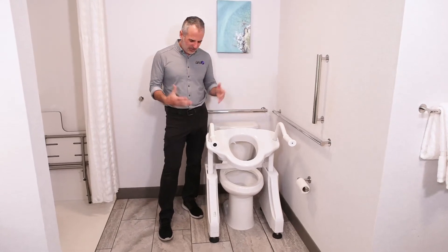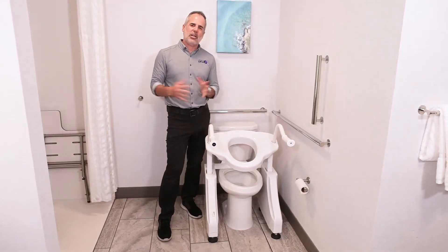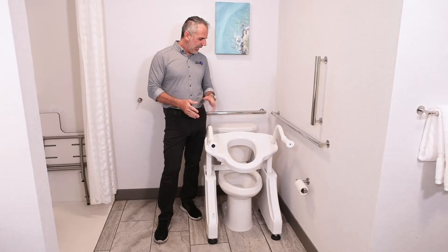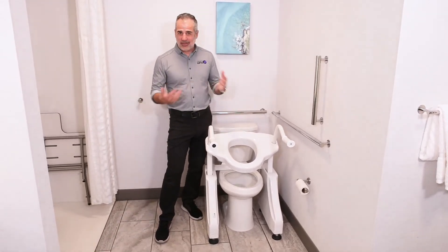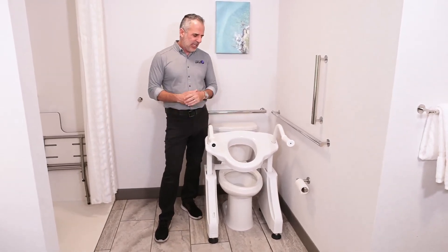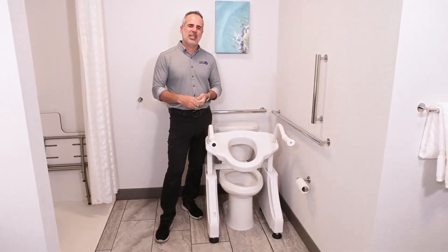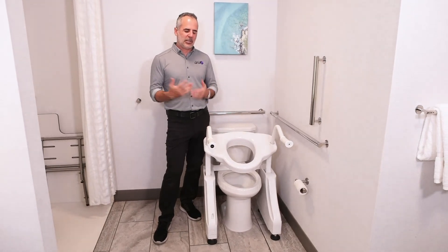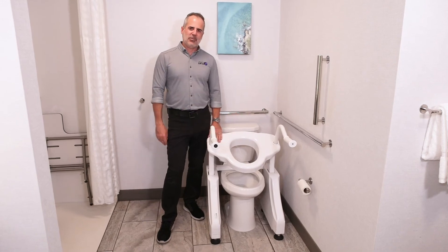It's fantastic — I love the DL1. There's an indicator on the front of the lift; when you push the buttons they will light up to tell you your state of charge and if you need to recharge the battery. It's sleek. I hate to say elegant, but as far as toilet lifts go, it's certainly the most elegant, reliable, and affordable — it costs about 12 days worth of assisted living. So if that's where your care is on the brink of going but you just need a little help toileting, we suggest a toilet lift.